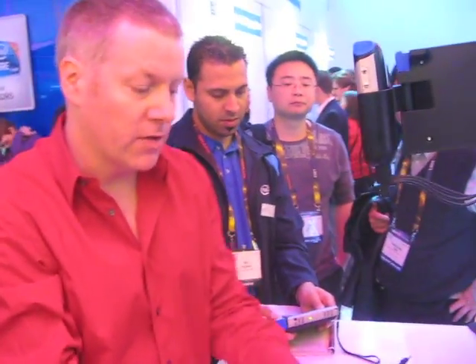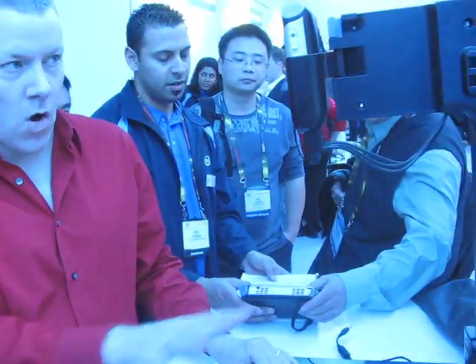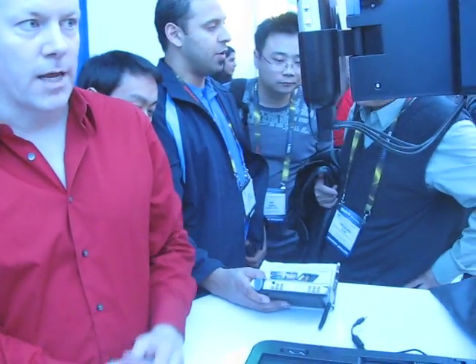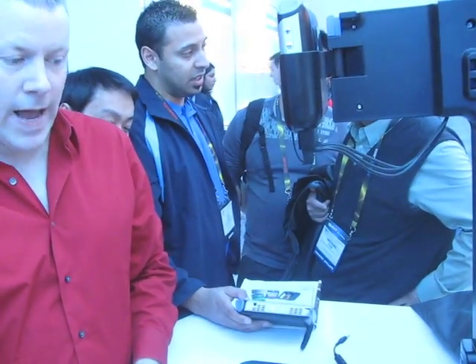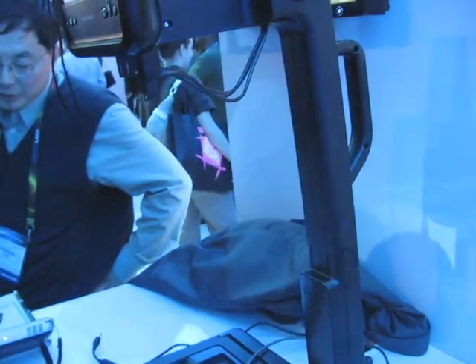Now I just have to reach this button to capture the text. We can get full text on the page — all of this will be captured when I do it. I'll go ahead and do it like this, take a picture. It will capture that content, and there's audio feedback that tells us when it's shooting.